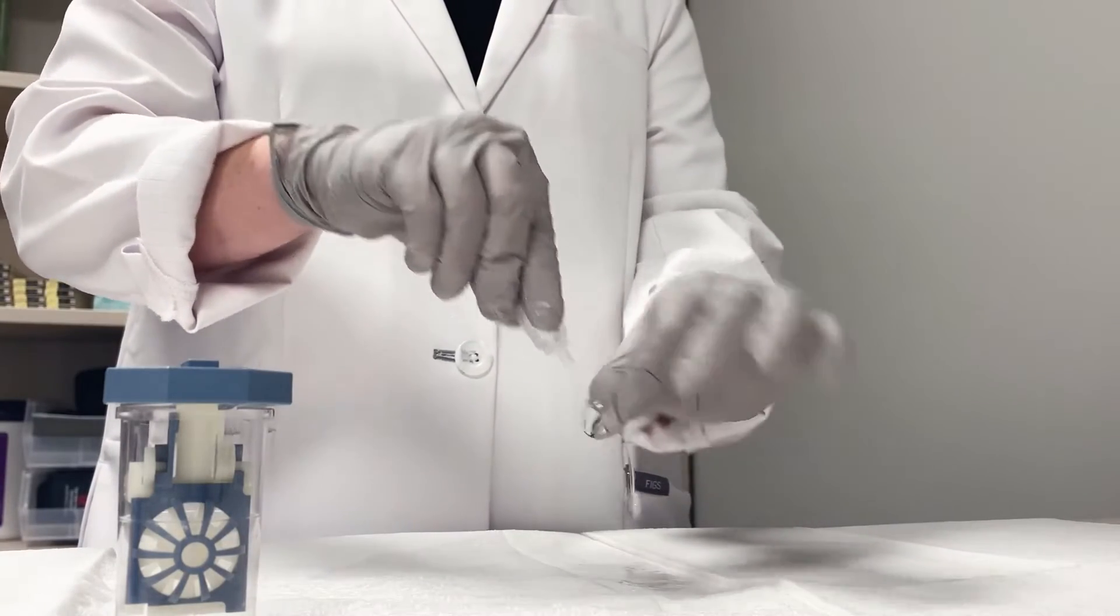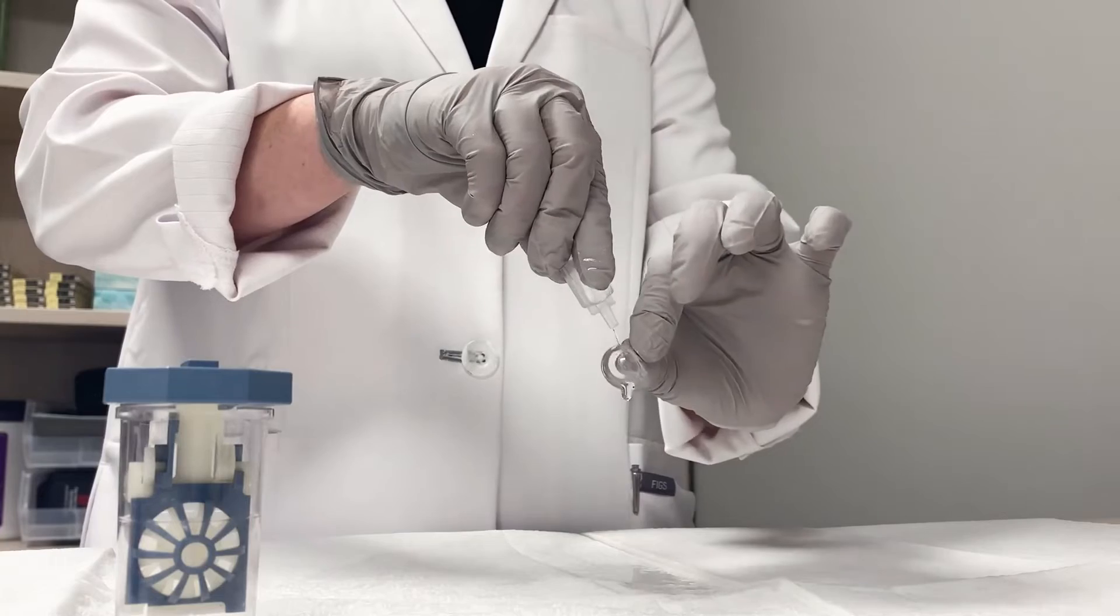After rubbing, you will then use the prescribed non-preserved saline solution to rinse the device.